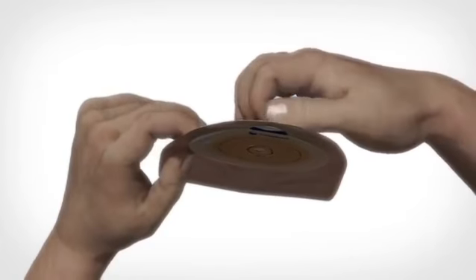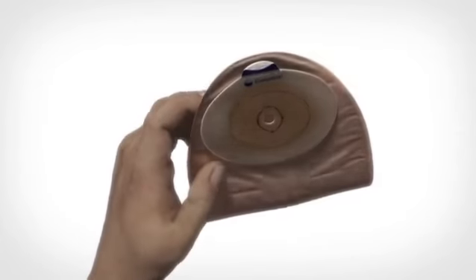Pull away the bag a bit to ensure you don't damage the bag itself while cutting the hole.